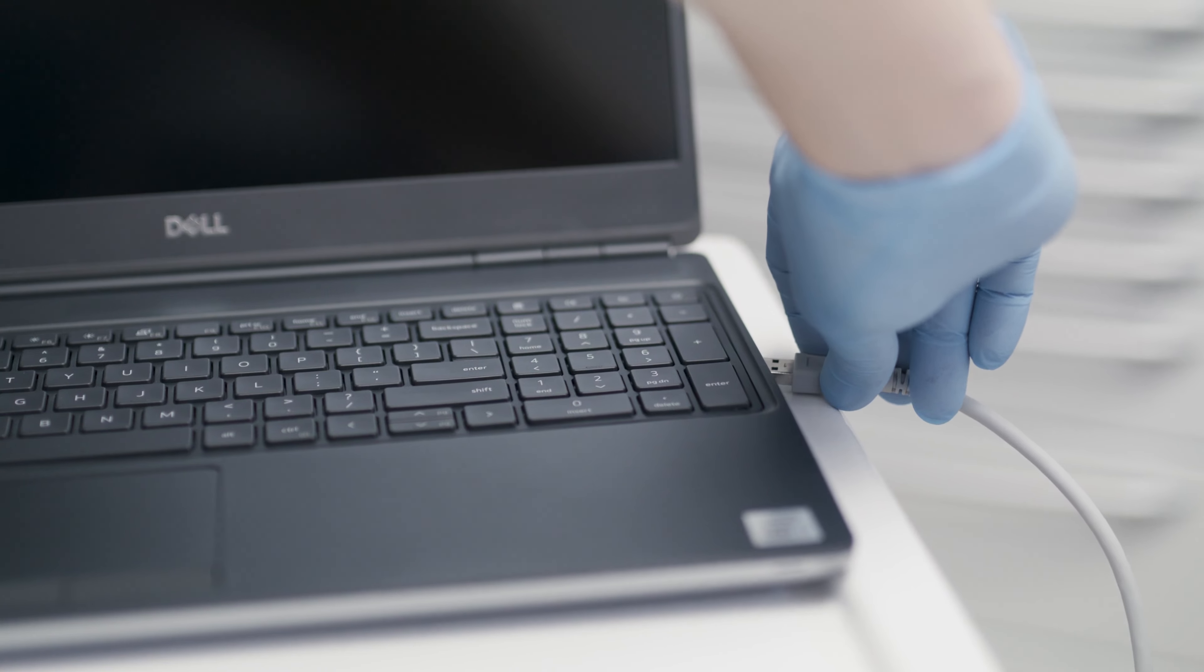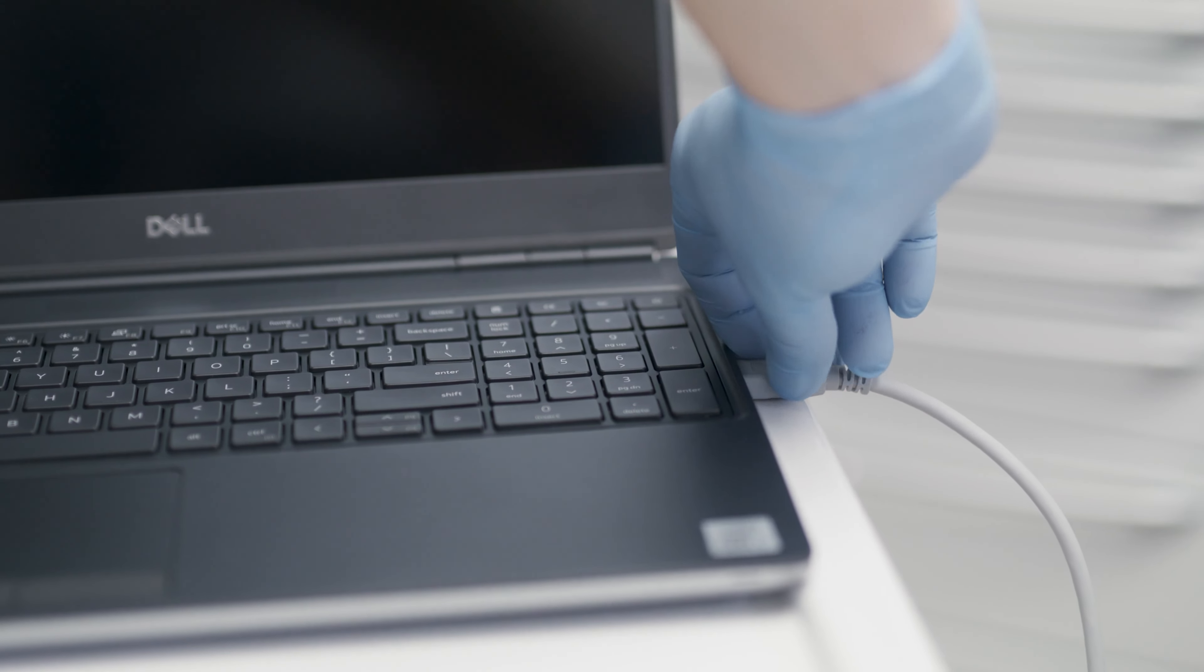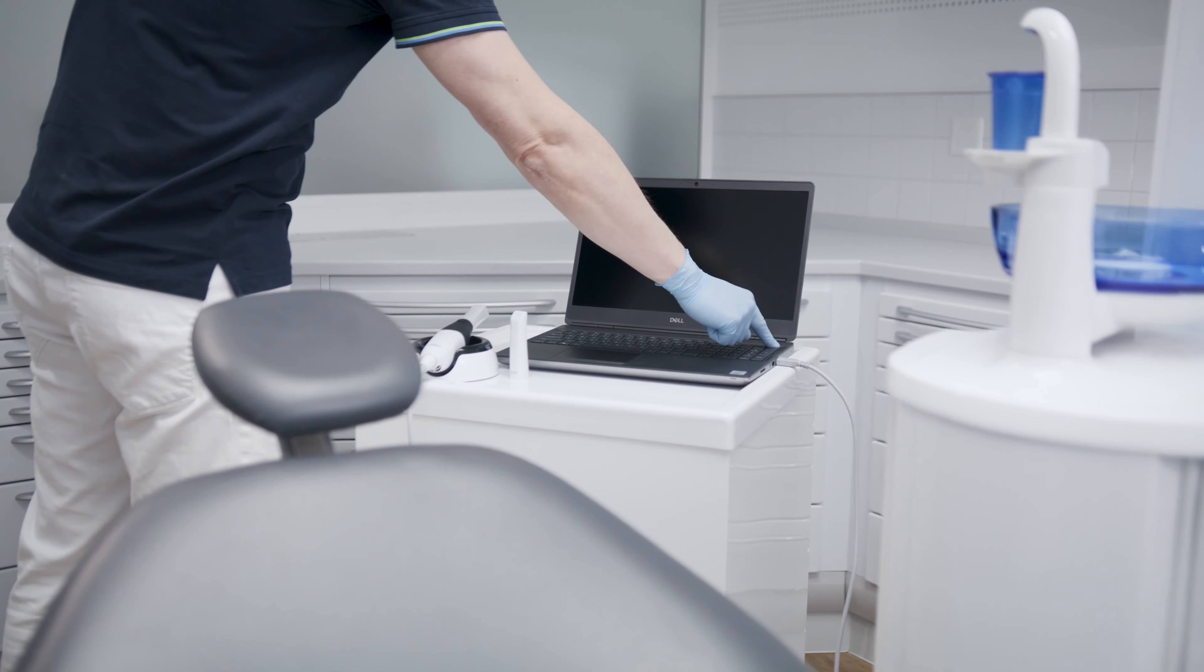Connect the scanner to the laptop with the cable. Start the laptop and launch the VivaScan software.